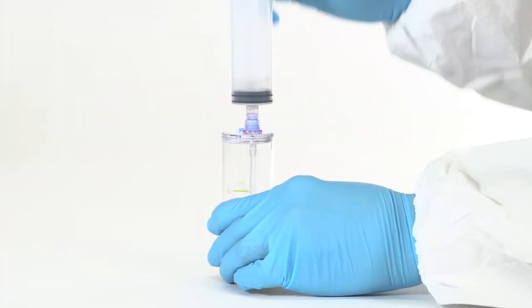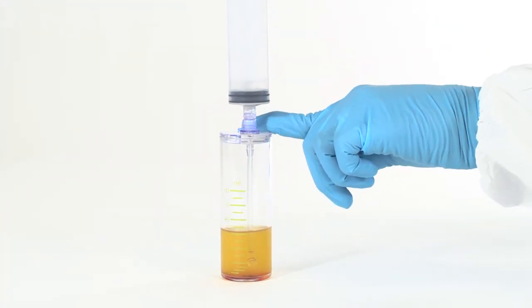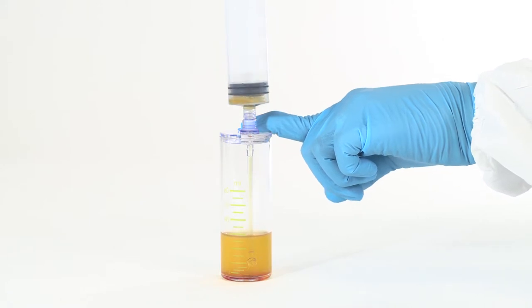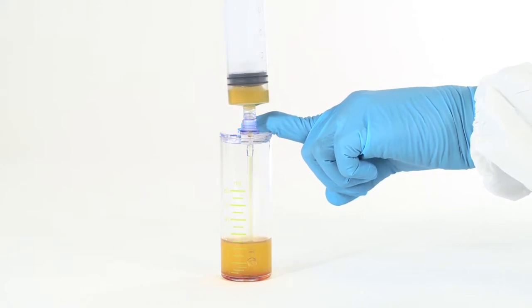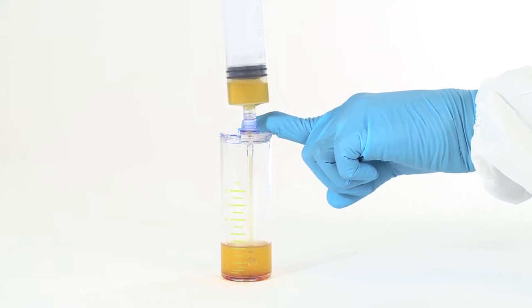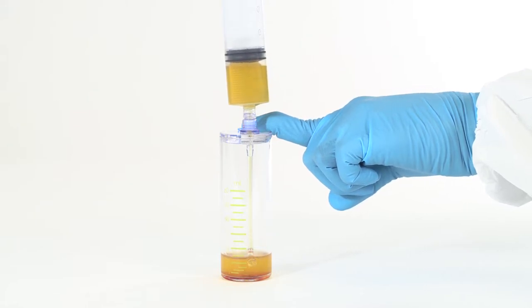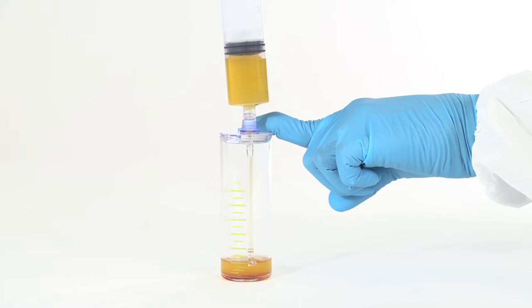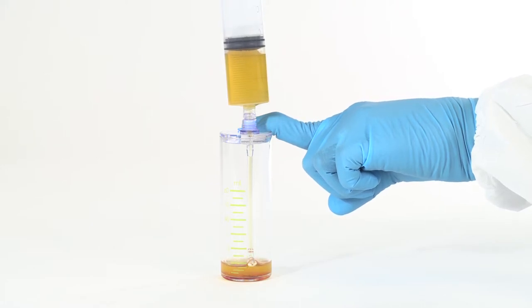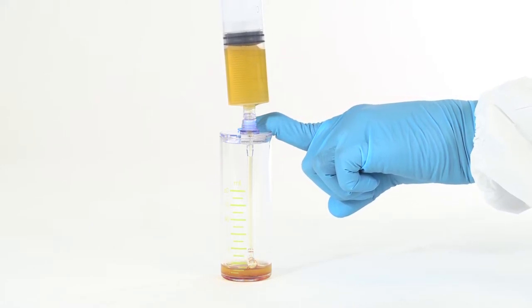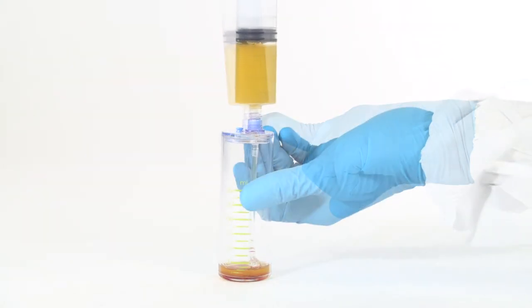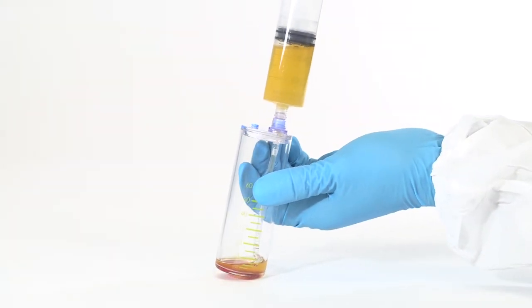Attach a sterile syringe to the needleless port and aspirate the plasma, leaving approximately 2 milliliters of solution in the device.